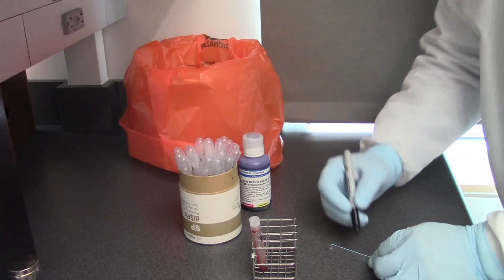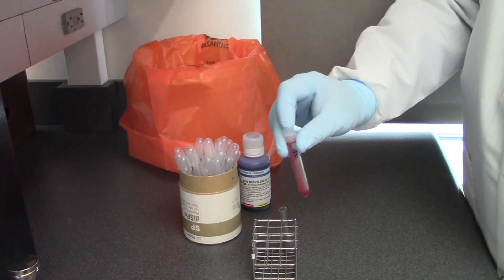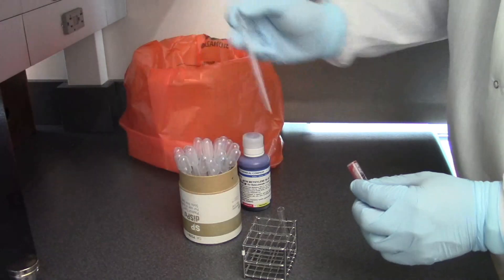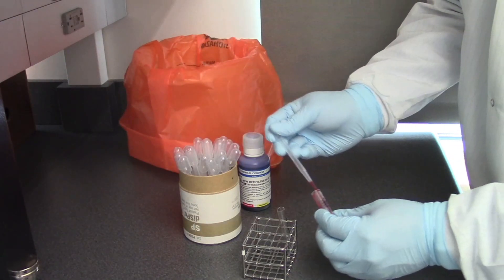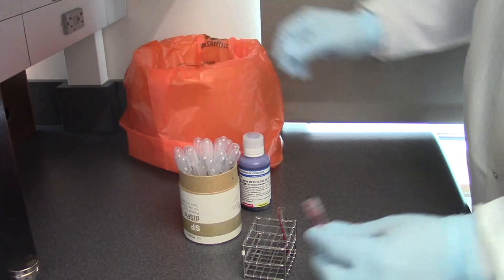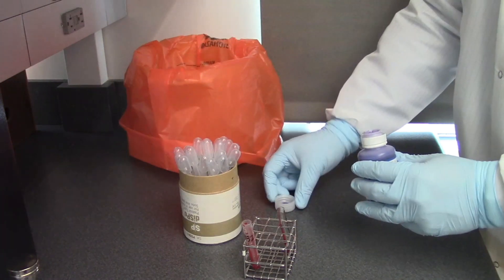To stain the reticulocytes, label a 12 by 75 tube with the patient information and mix the sample. Using a disposable pipette, add three drops of sample to the appropriately labeled tube. Using a different disposable pipette, add equal amounts of new methylene blue stain to the sample.